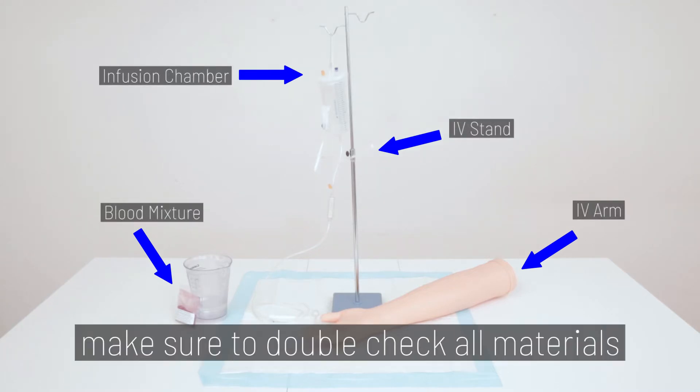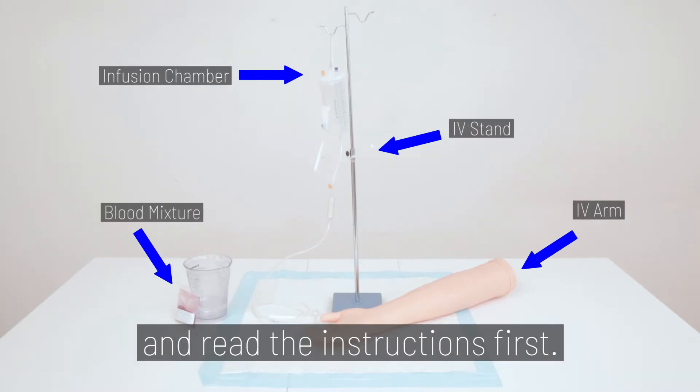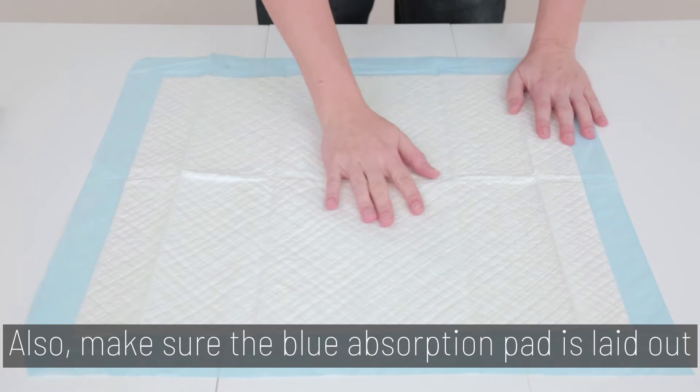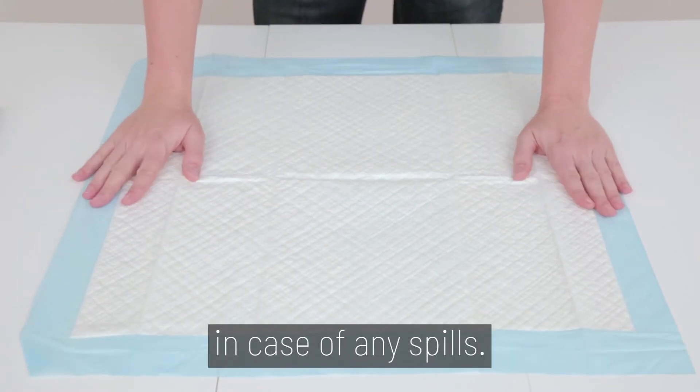Before we begin, make sure you double-check all materials and read the instructions first. Also, make sure the blue absorption pad is laid out in case of any spills.